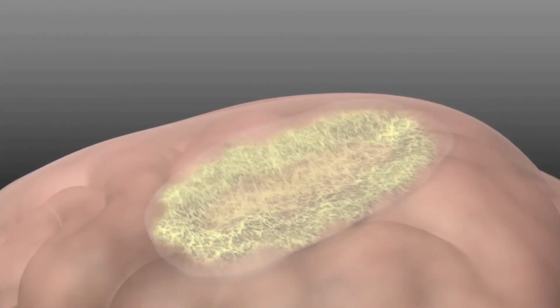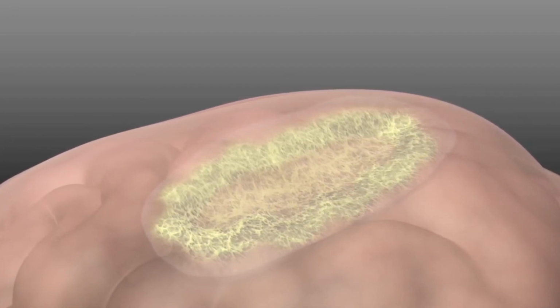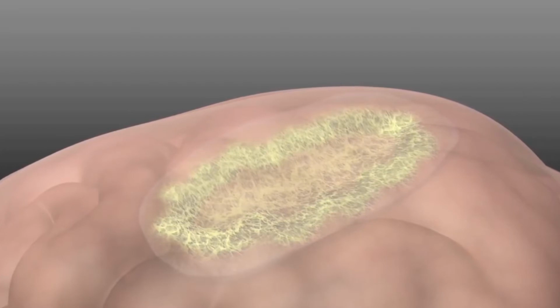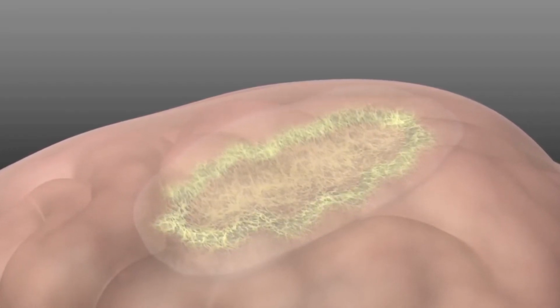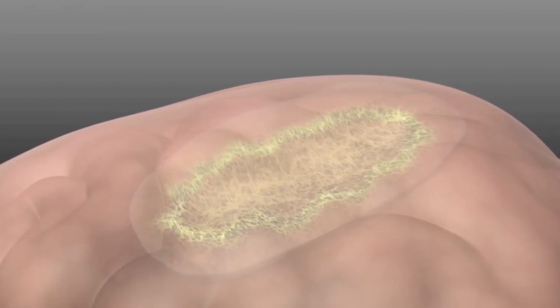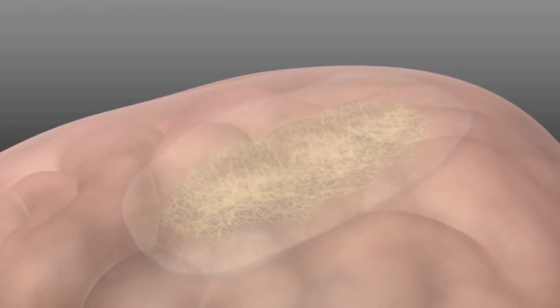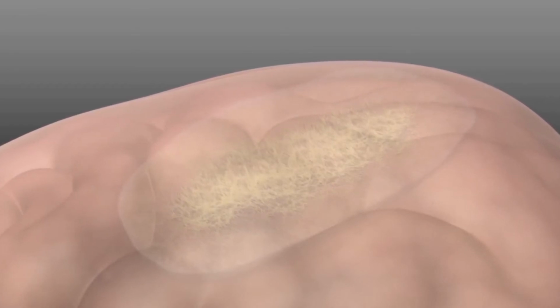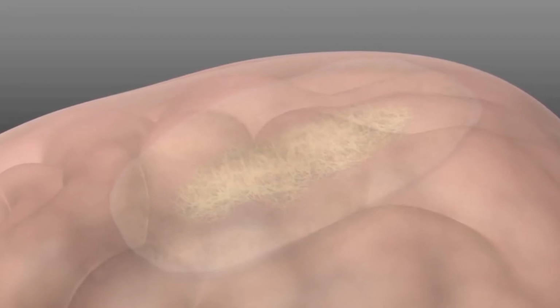A complete tissue membrane is established within 2 weeks of implantation. The new membrane acts as a permanent barrier to contain the CSF, replacing the fibrin clot that breaks down during the normal course of wound healing. The porous nature of the matrix, combined with the type 1 ultrapure collagen, provides a scaffold that is similar to the patient's own native collagen.